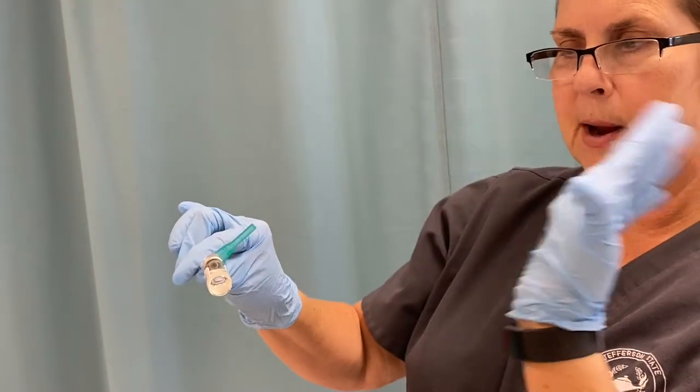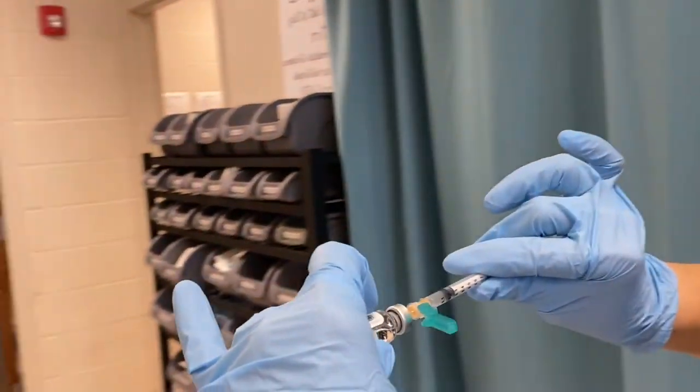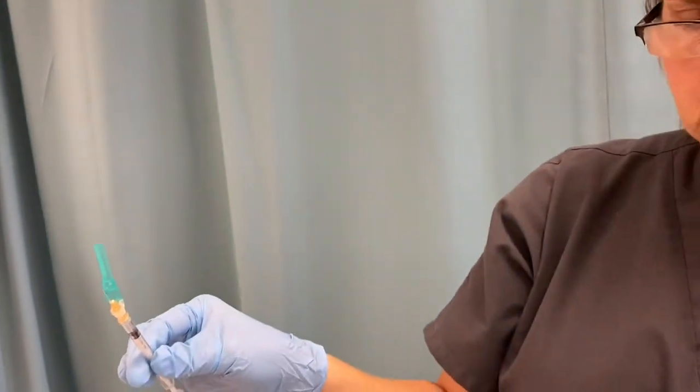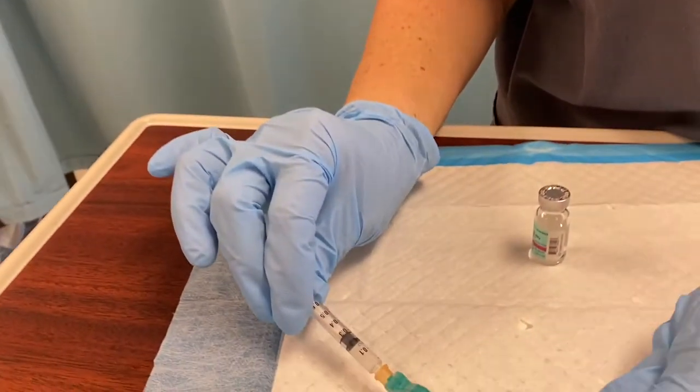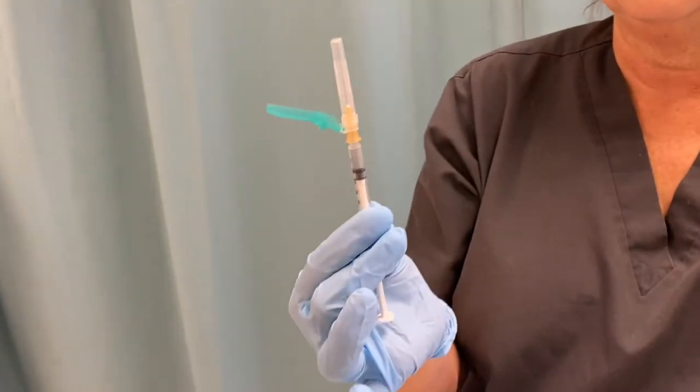You always want to remove the vial away from you, because if not, it could spray medicine on you. You want to remove the vial and the syringe away from you. And then you're going to put your cap — you're going to scoop and then you can put it back on. Now, once you inject a patient, you never, ever, ever recap a needle like I just did. That's only done when you have your medicine and this has not been inserted to the patient.